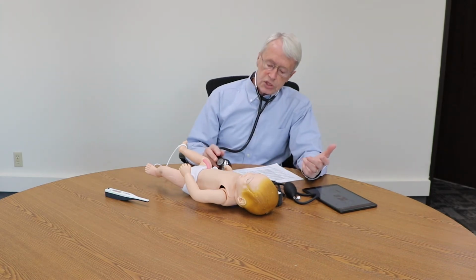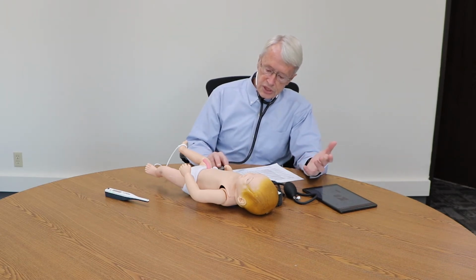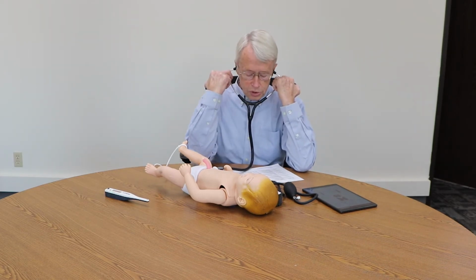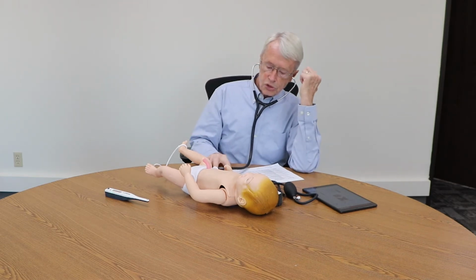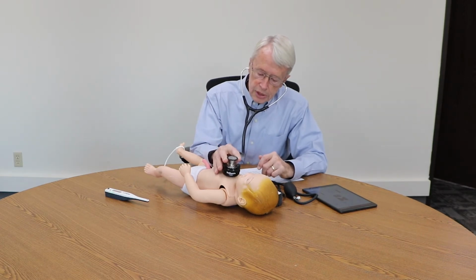The other thing that really helps us out in terms of physical diagnosis is auscultation of the chest. We want to listen and see are there any abnormal heart sounds, but also what are the sounds that we would hear, and are there sounds of a pneumonia, because this baby looks like it's ill with a respiratory infection. So using the reality scope attached to my stethoscope again, I can listen.